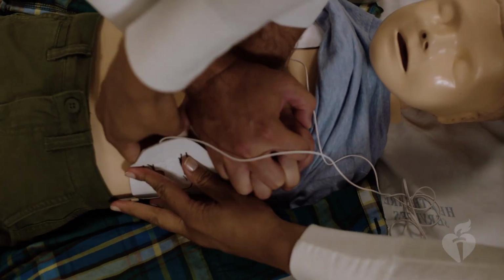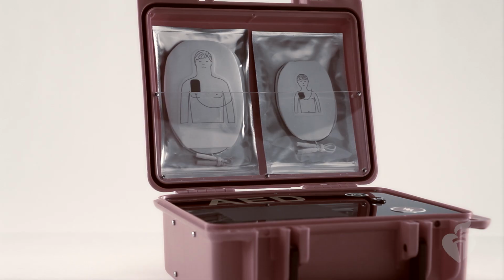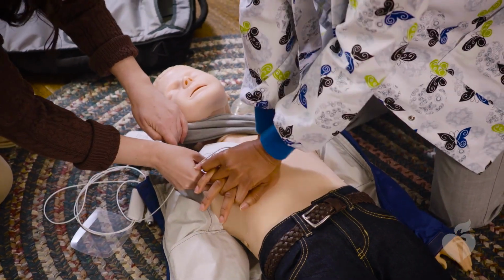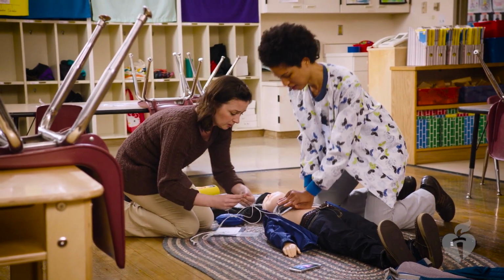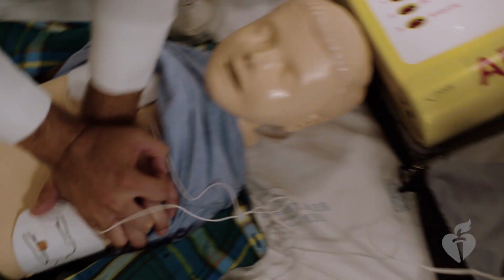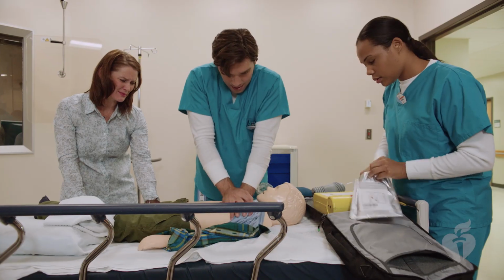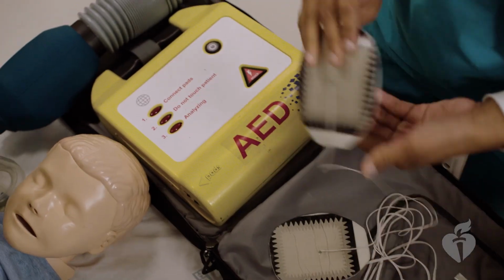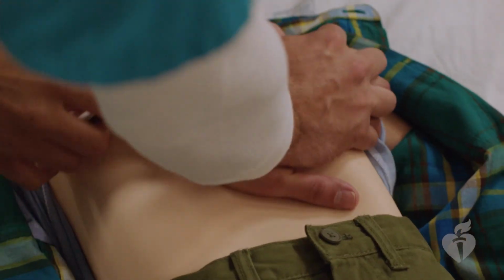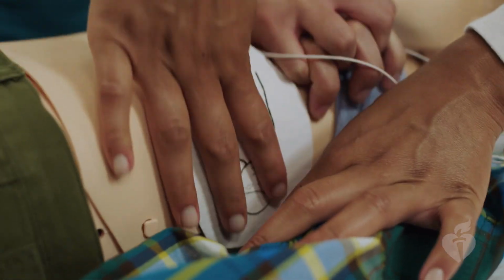Either way, after the AED is on, attach the pads to the child's chest by using the diagrams on the pads for correct placement. Some AEDs may have adult and pediatric pads. Be sure to use the adult pads on anyone 8 years of age or older. If you're not sure of the child's age, use the adult pads. You may also need to plug in the pads for certain models. Following the pictures found on the pads, attach the adhesive pads to the child's bare chest.